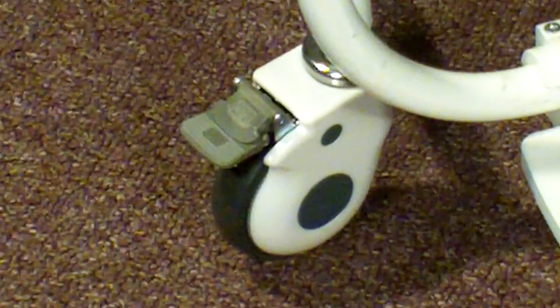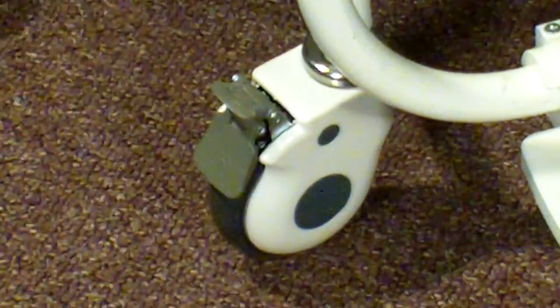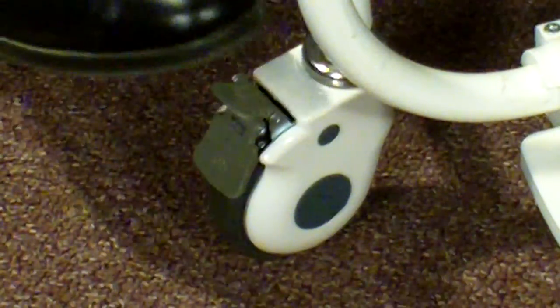The four full swivel wheels feature a convenient locking mechanism. To secure the wheel, simply press down on the locking arm. And to release the wheel, press down on the release arm.